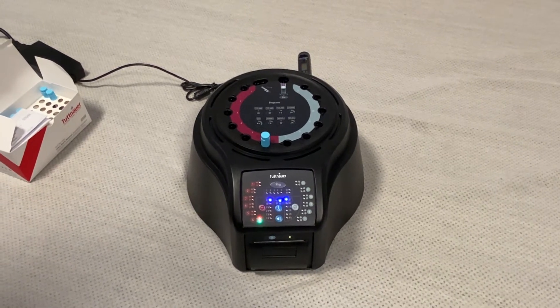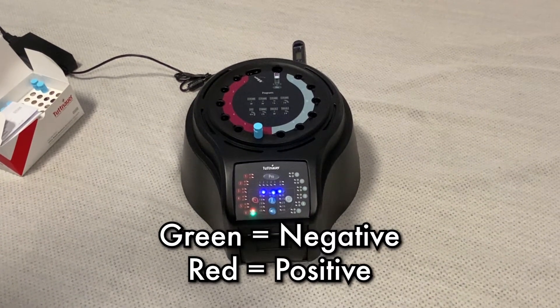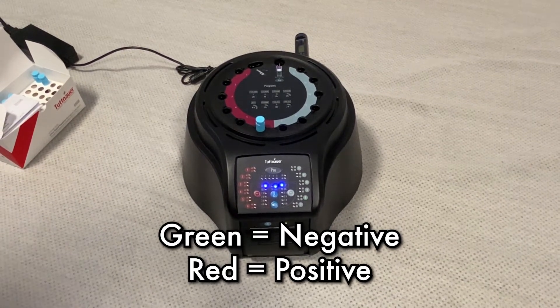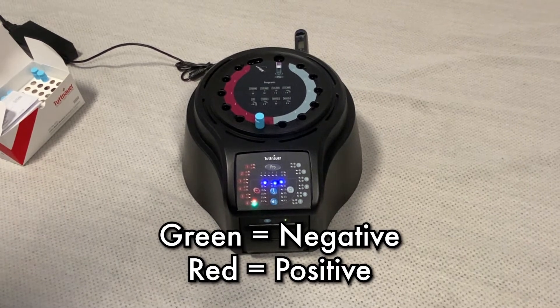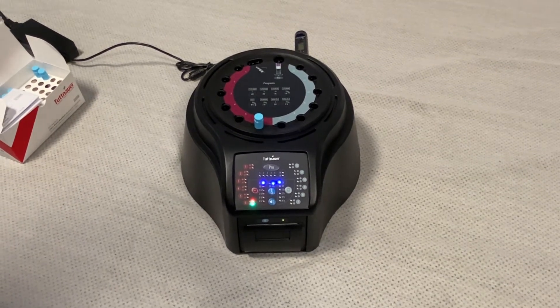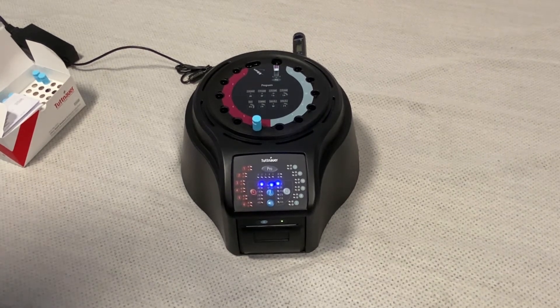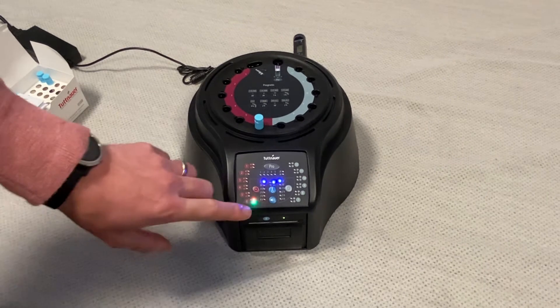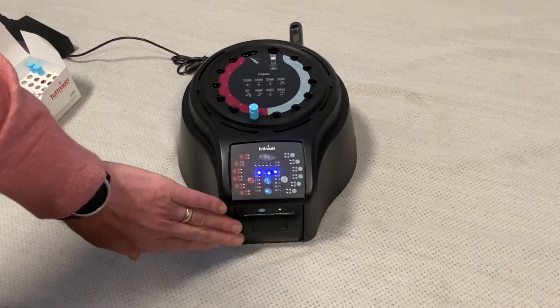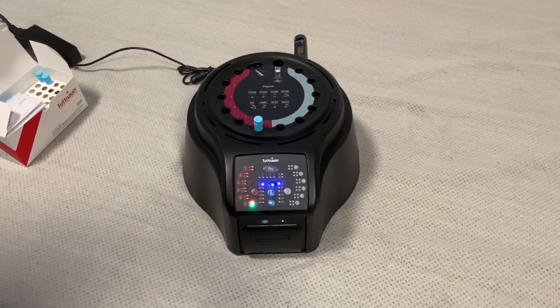At completion of the test, we're either going to get a solid green light or a solid red light. A solid green light indicates a passed test — the indicator was negative for bacteria. If the red light comes on, it means you have failed the test and it is positive for bacteria. At that point, you're going to want to get a new indicator and rerun your sterilizer to confirm that result. Once this test is run for 20 minutes, you're going to get a printed receipt from the internal thermal printer indicating whether you passed or failed, for keeping your sterilization records.